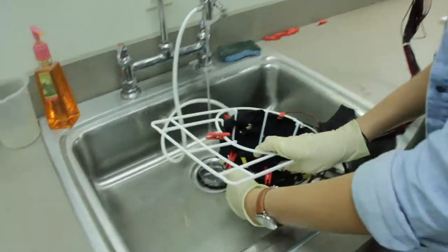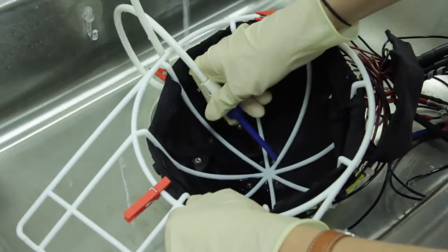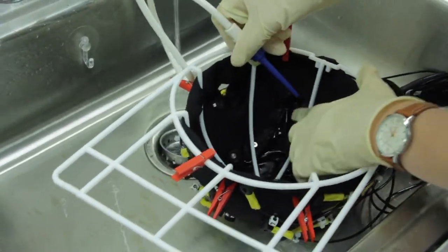After you have cleaned the reference and ocular electrodes, place the cap upside down to reveal the bottom of the electrodes. Go row by row with the water jet to remove the gel clumps.